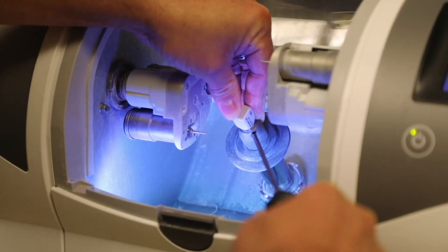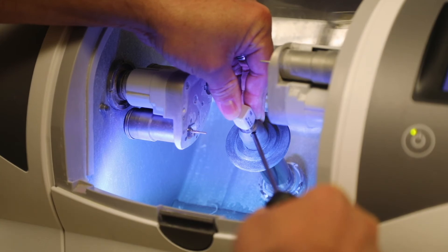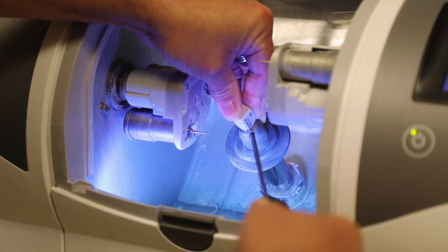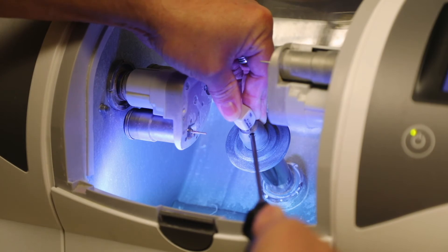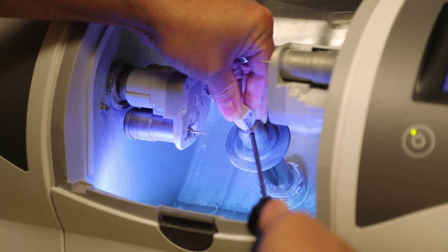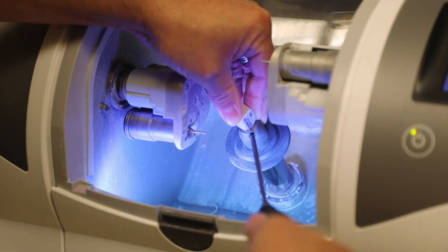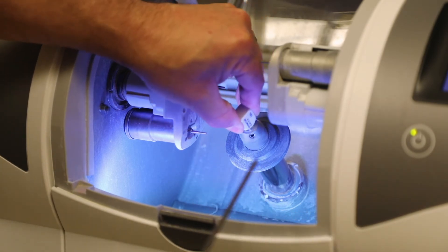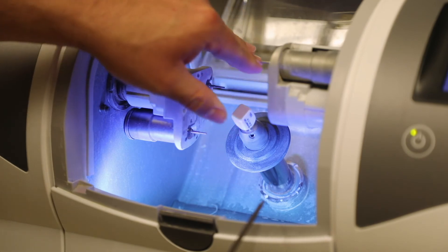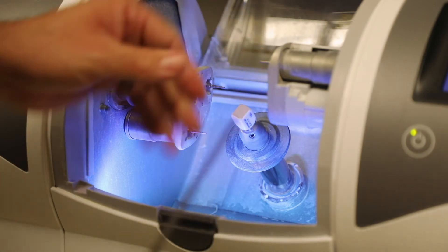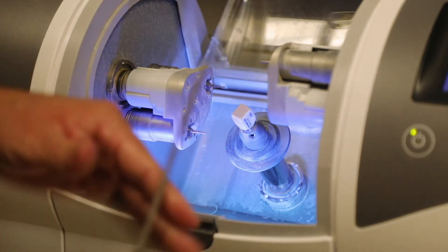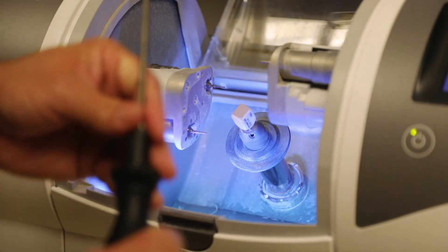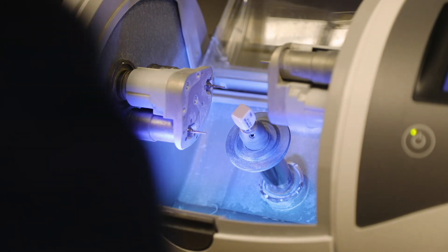And then when you start to rotate it just enough, what you're going to notice is it's going to start to get tight and you're going to feel some tension and some pressure. Keep turning, keep turning, you're going to feel it pop right there. When that pops like that, that means that this is secure. And if you don't hear the pop, you haven't turned it enough yet, so you need to hear that pop and make sure that the block is good and secure.